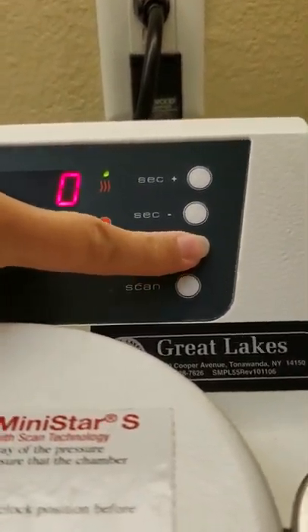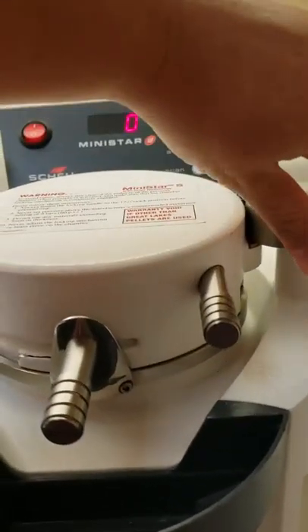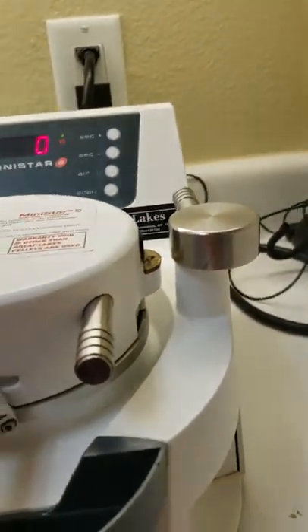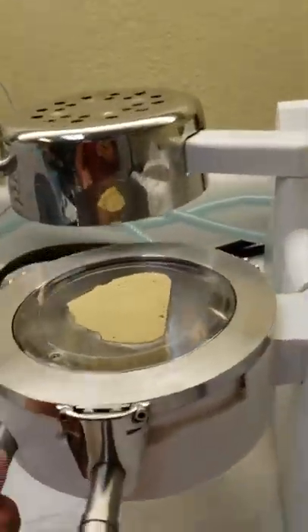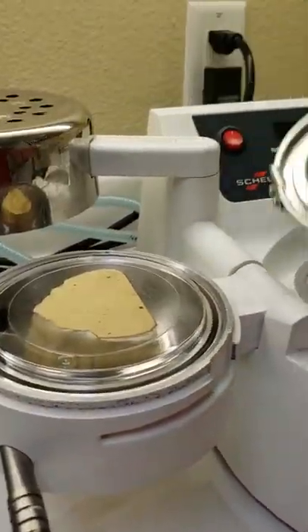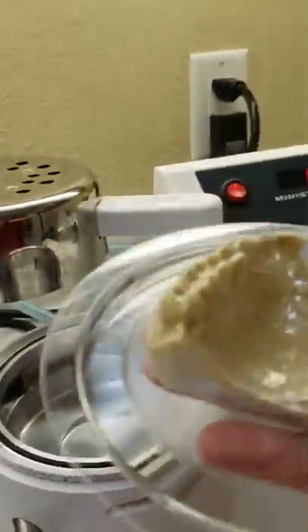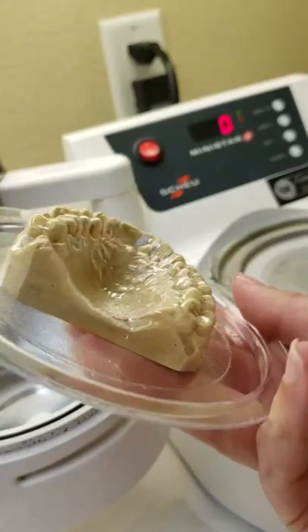The timer's done — you can see the little blue light flashing. Hit that button and you'll hear all the air pressure come out of the unit. Now go ahead and remove the latch, flip it over, undo the lever, take it off — it's not hot, it's all perfectly sucked down and ready to be trimmed.